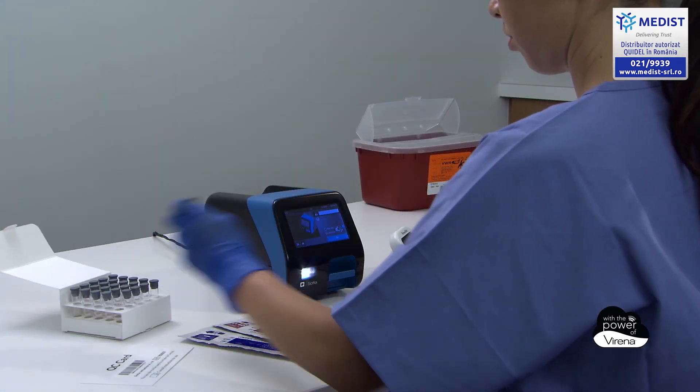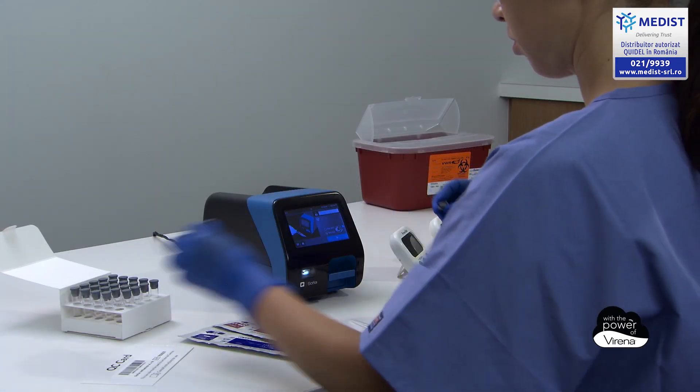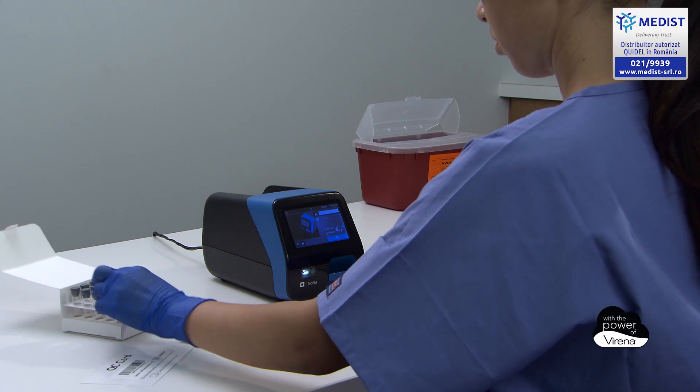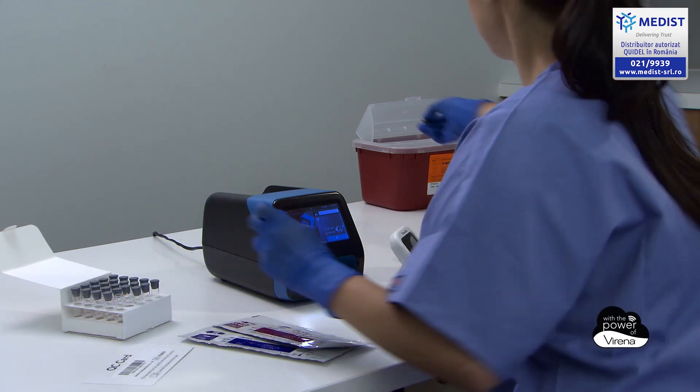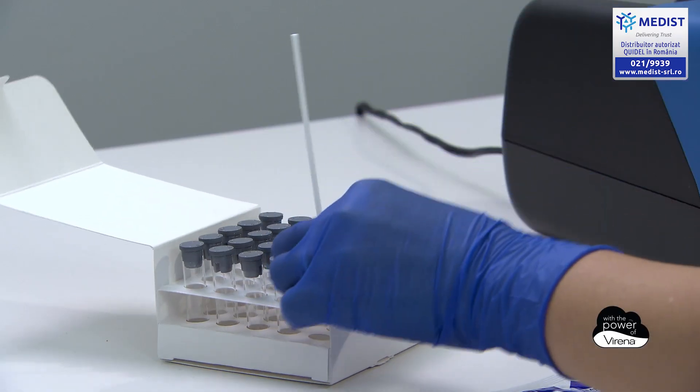Sophia2 and Sophia FIA assay procedures are simple, CLIA-Waived, and can be run reliably by both laboratory and non-laboratory personnel.